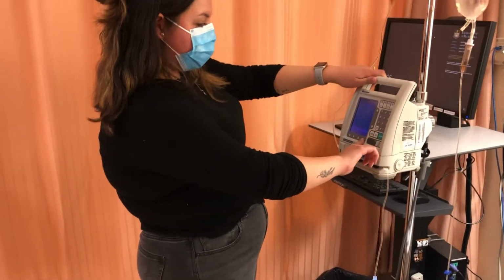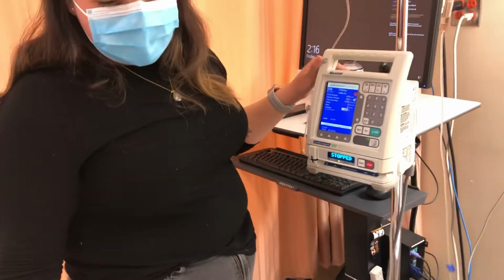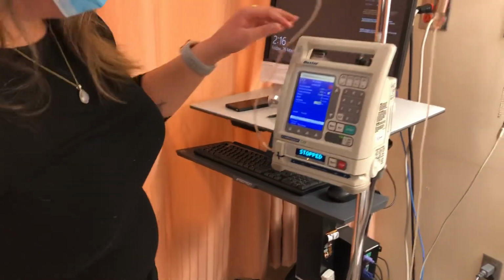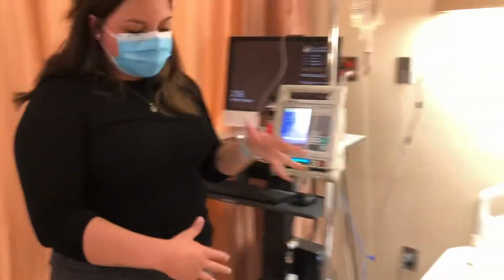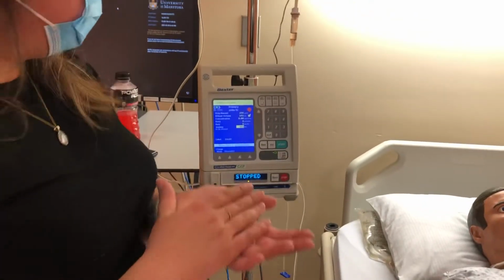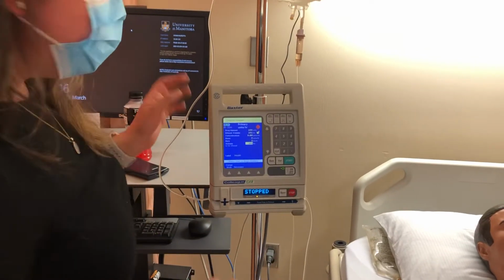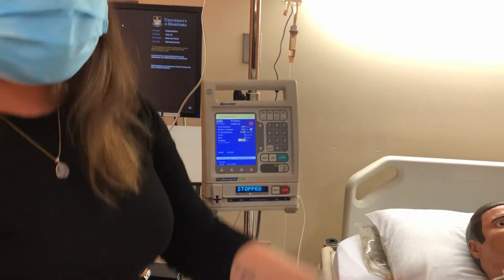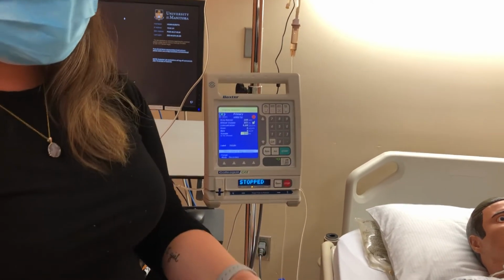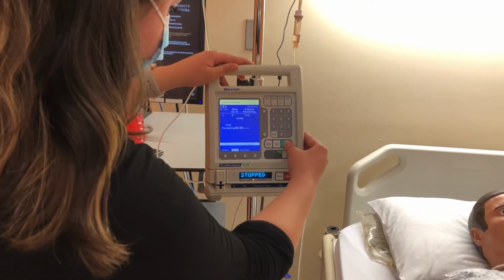So I will confirm my primary. Doing my assessments, I provided patient education. I've done my third check. I've checked all these. I've checked this to this. And before I press start, before I would have attached this to the patient, I would have had a second nurse come complete a second independent check to ensure that I programmed this pump correctly. So with that being said, I would then attach this to the patient, ensure the patency, provide education, and assess the patient's blood glucose and vital signs, and then I can press start on this patient's continuous infusion.